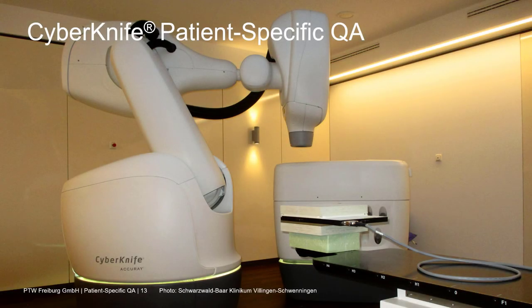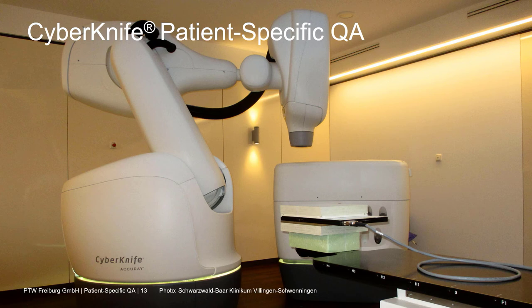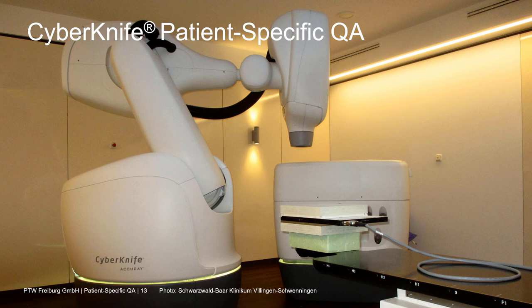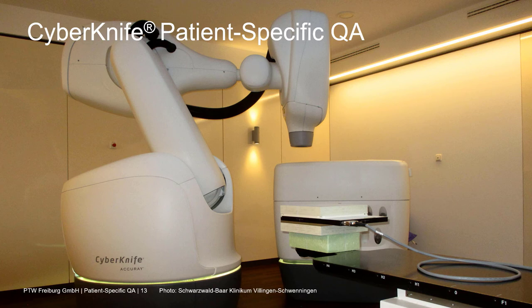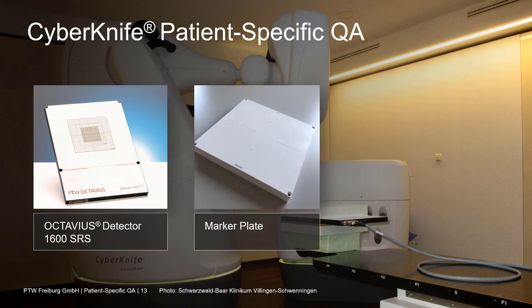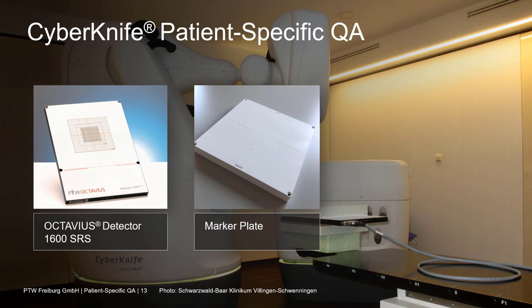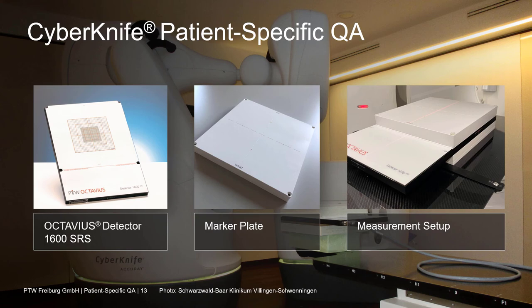Now I will describe a special application of the Octavius Detector 1600 SRS: its use for CyberKnife patient-specific QA. The key benefit is the negligible angular dependence, which allows irradiation from all possible nodes. The use of ionization chambers guarantees a stable signal independent of accumulated dose and no need for on-site recalibration. For the measurement setup, you only need the Octavius Detector 1600 SRS, a CyberKnife marker plate with integrated fiducials for the CyberKnife alignment system that screws onto the detector, and some RW3 slabs for backscattering.